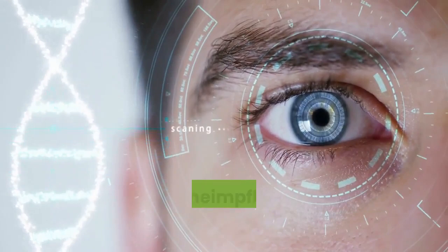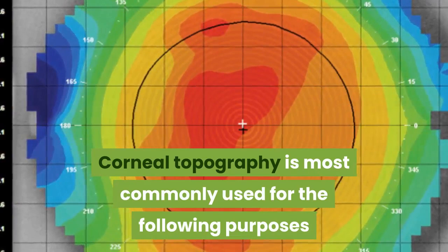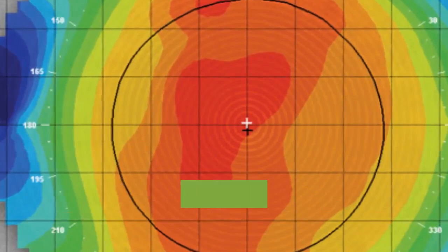Corneal topography is most commonly used for the following purposes. In refractive surgery, it is used to screen candidates for normal corneal shape patterns and to rule out suspicious or keratoconic patterns.